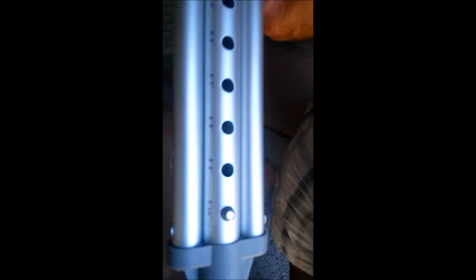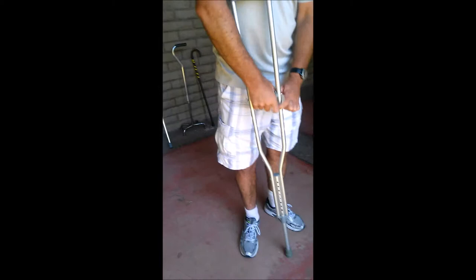This one only goes up to five foot ten, so this is essentially for someone ranging from five foot two up to five foot ten. There's essentially a pediatric set that would be smaller and a larger adult set.